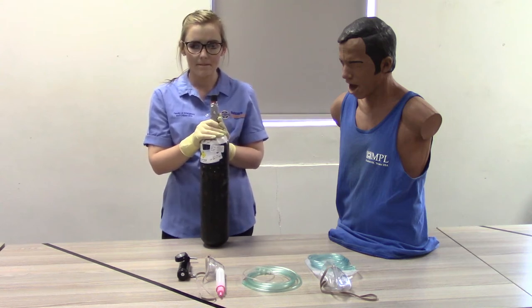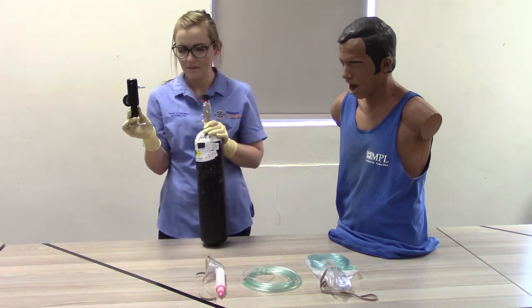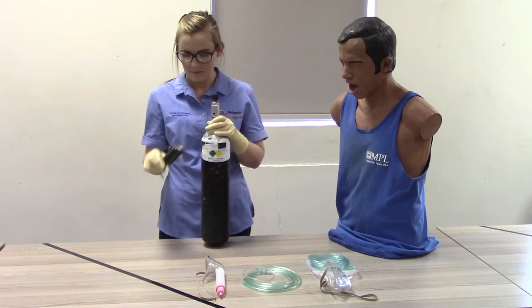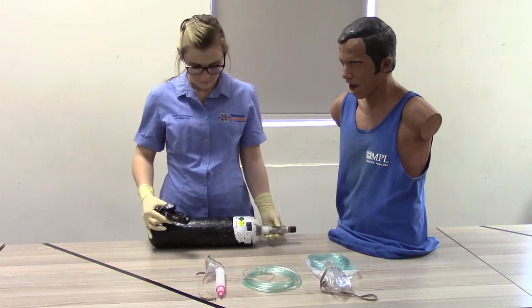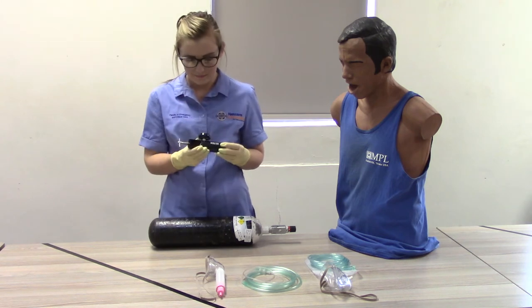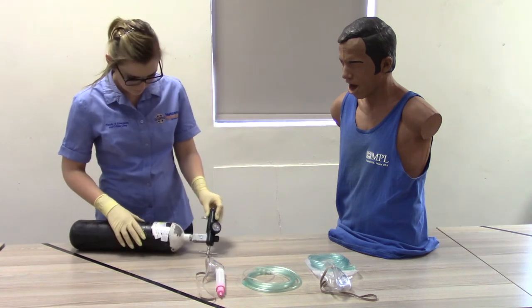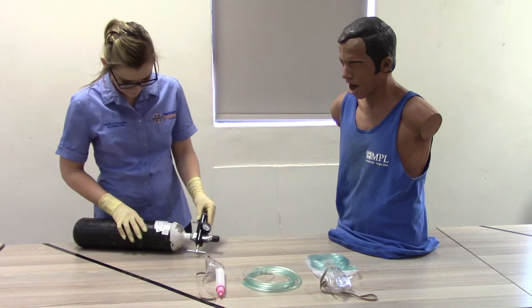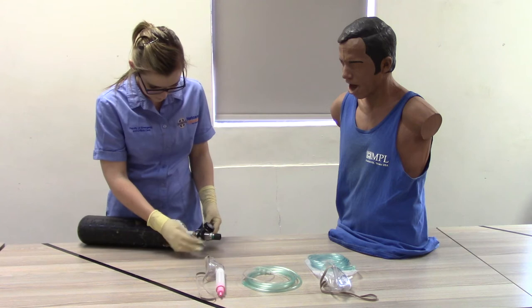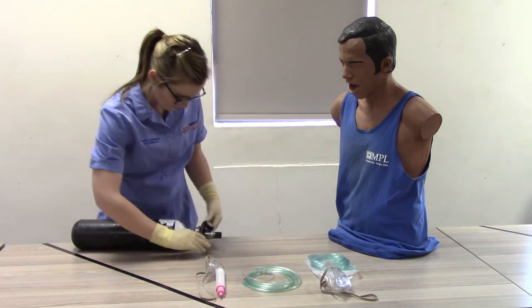Step 3: Application of pressure reducing gauge. Select the correct pressure reducing gauge for the oxygen cylinder. Ensure that the flow regulator is closed. Ensure that the O-ring is in place and non-porous. Connect the pressure reducing gauge to the oxygen cylinder. Slowly open the oxygen cylinder's main valve and listen for any air leaks.